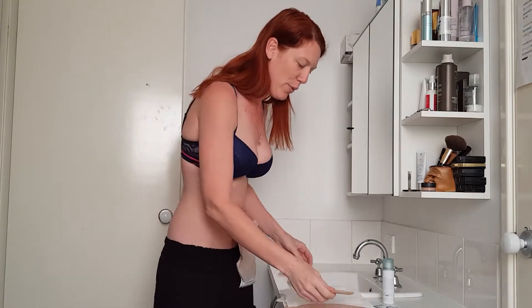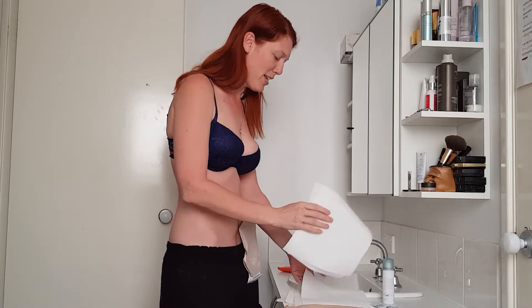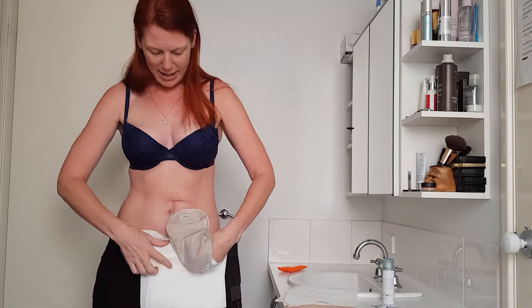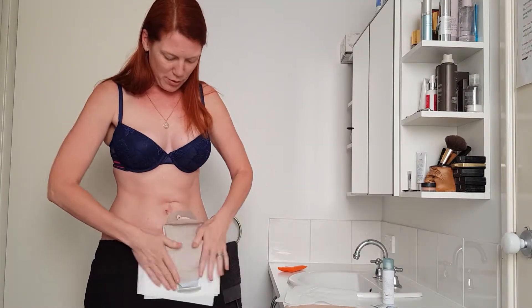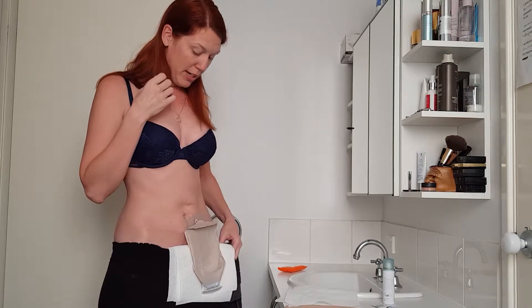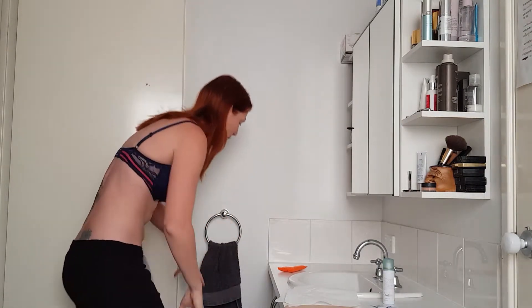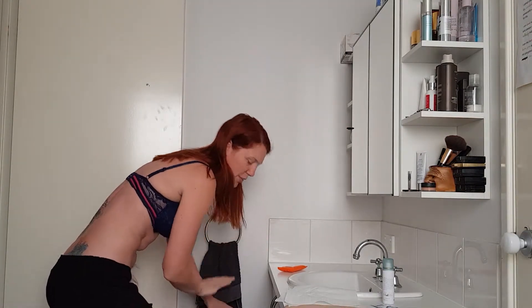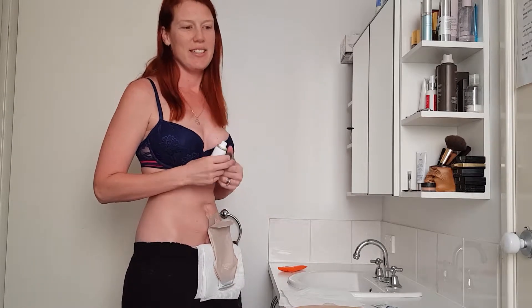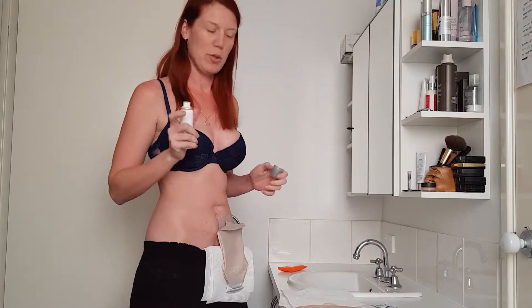The first thing I always do is get some paper towel, just because it's a protector — stick it underneath my bag and then stick it folded over in my pants so that it's not going to make extra mess. I always change in the morning. I have a nappy bin down here. I always change in the morning for the reason that output is least active in the morning.